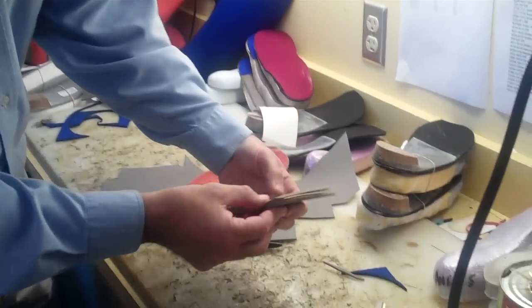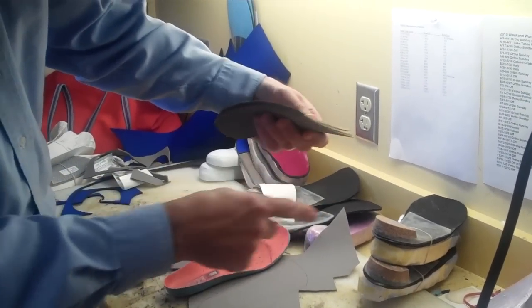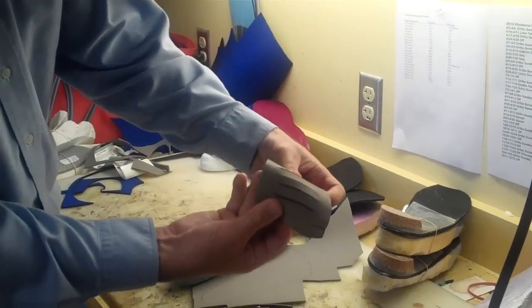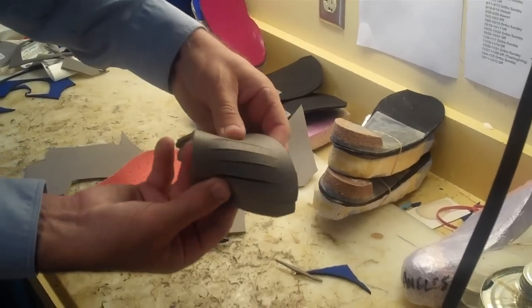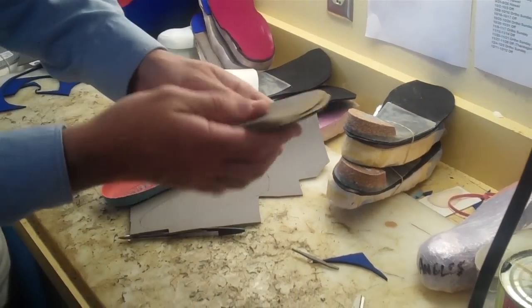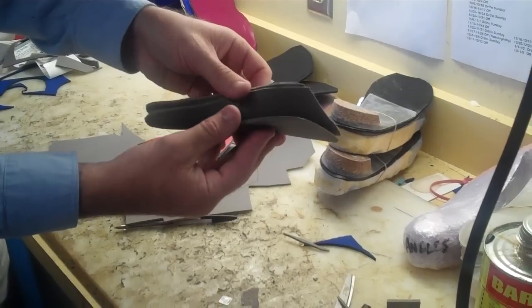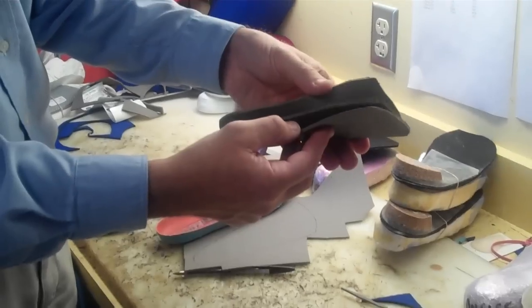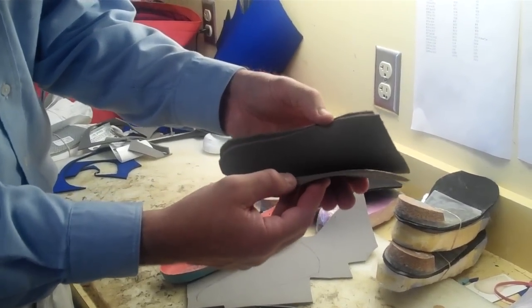So here's the tapered lifts here, and they've been cut to make them more flexible, and again Liz will slowly break into these. Thank you very much, and I hope that helps you understand full length lifts.